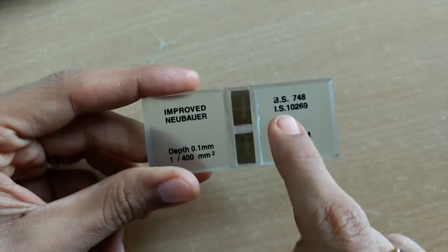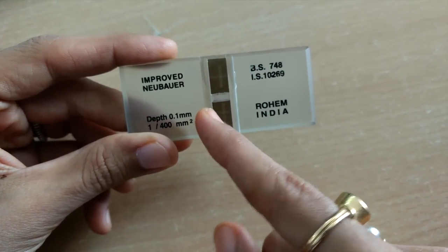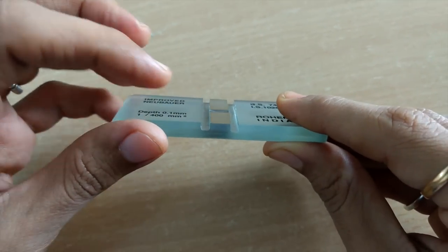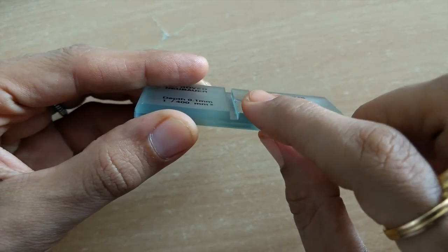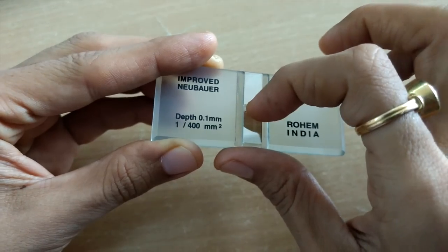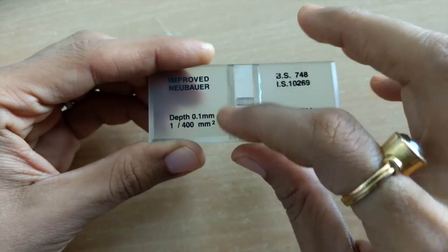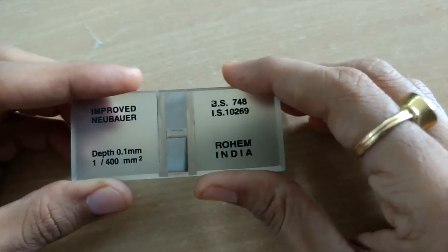And these 3 platforms are separated by 2 gutters. These are the 2 gutters you can see here. These are the 3 platforms. They are separated by these 2 gutters, and here, centrally also, this gutter is present. So the gutter gives H shape. So it is a set of gutters in the shape of H.